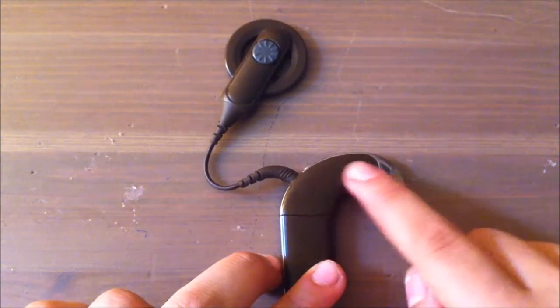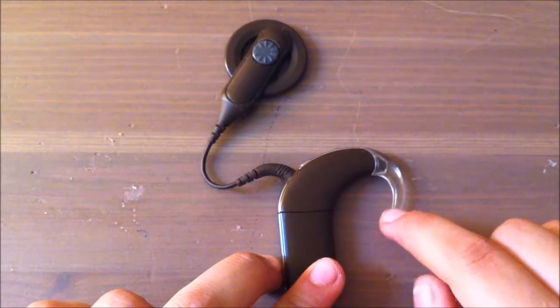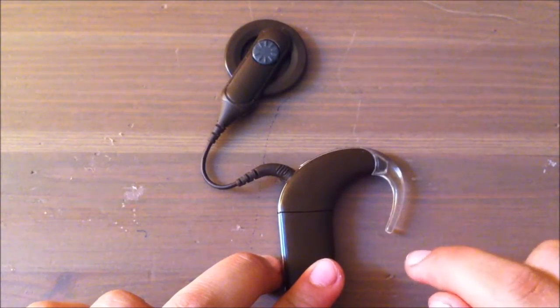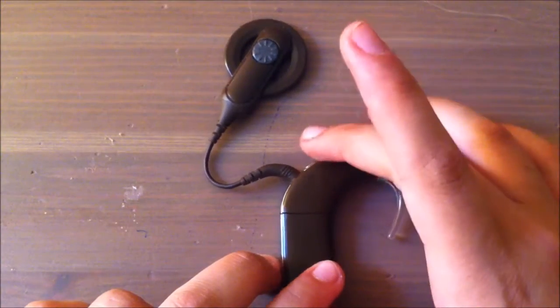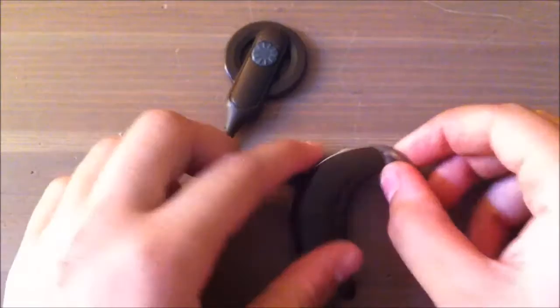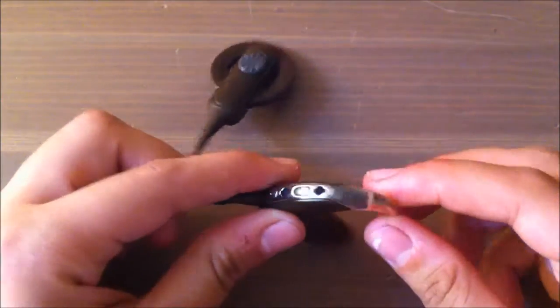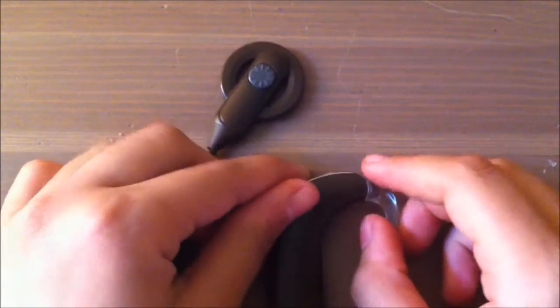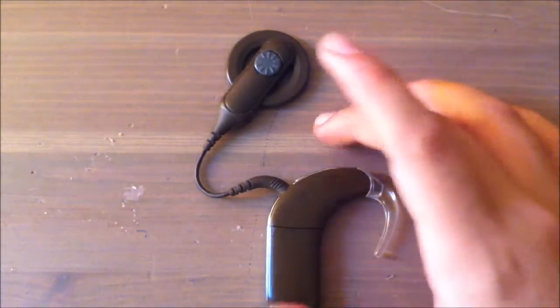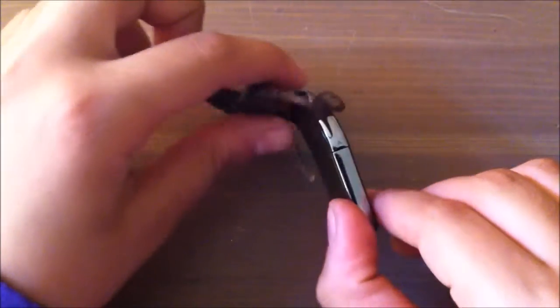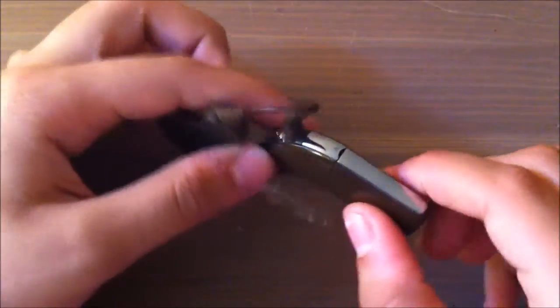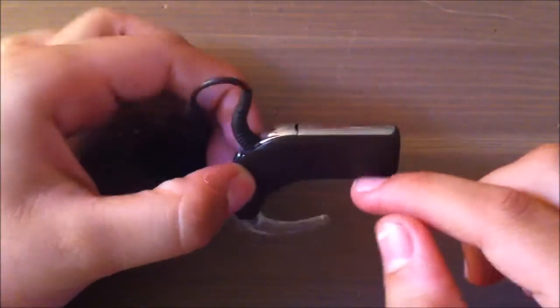That's the hook which connects to your ear. It's plastic and connects the processor to the ear.